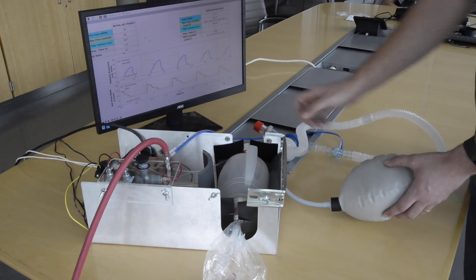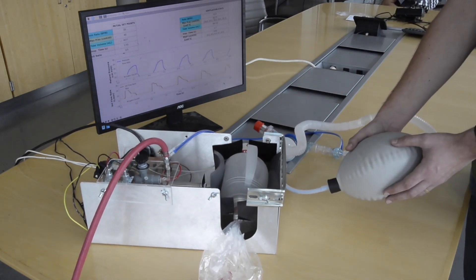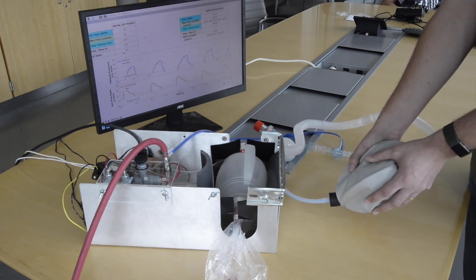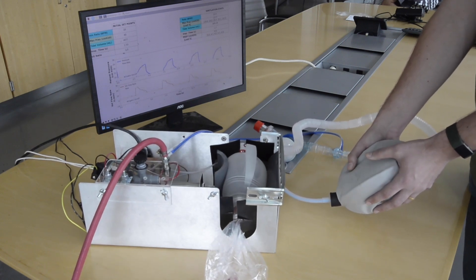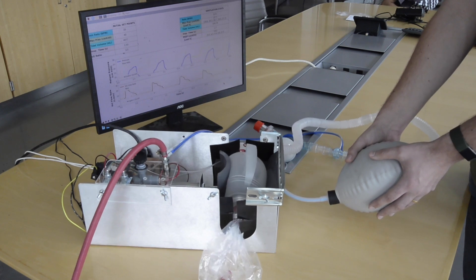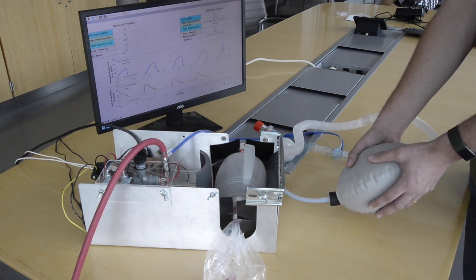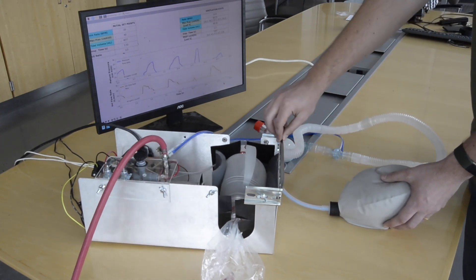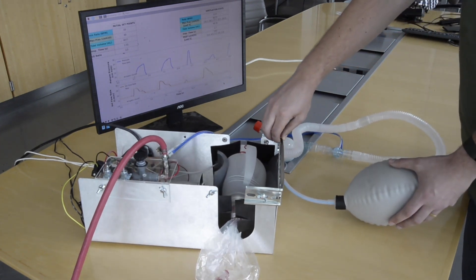To demonstrate that, I'm going to apply some pressure on this next breath. You can see how the breath is cut short in order to protect the patient from the overpressure.